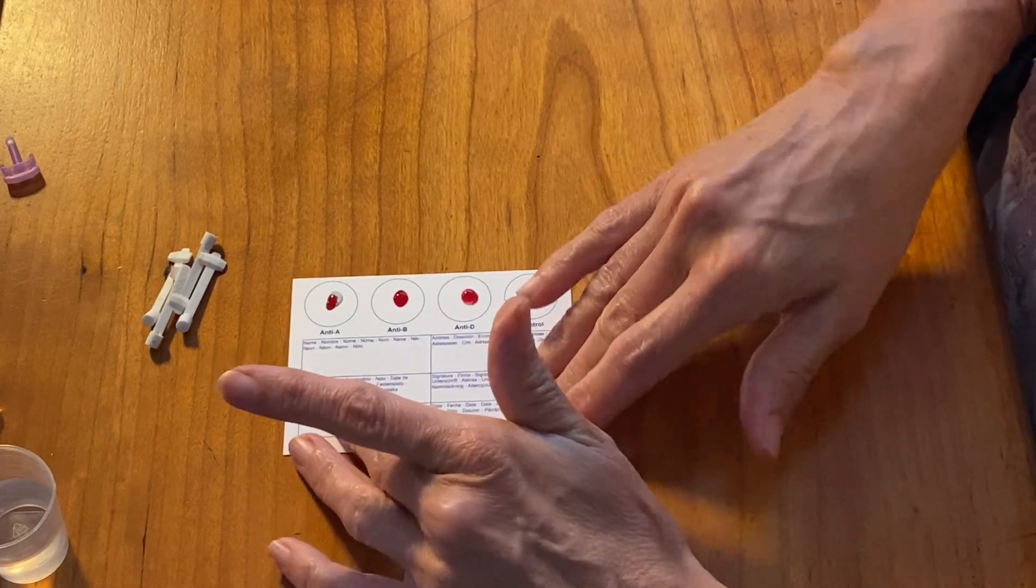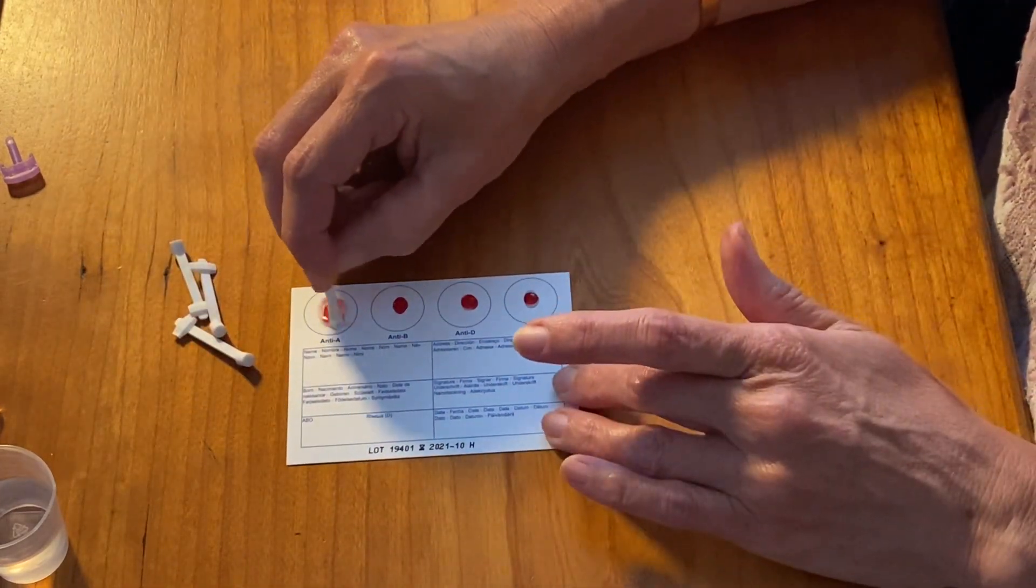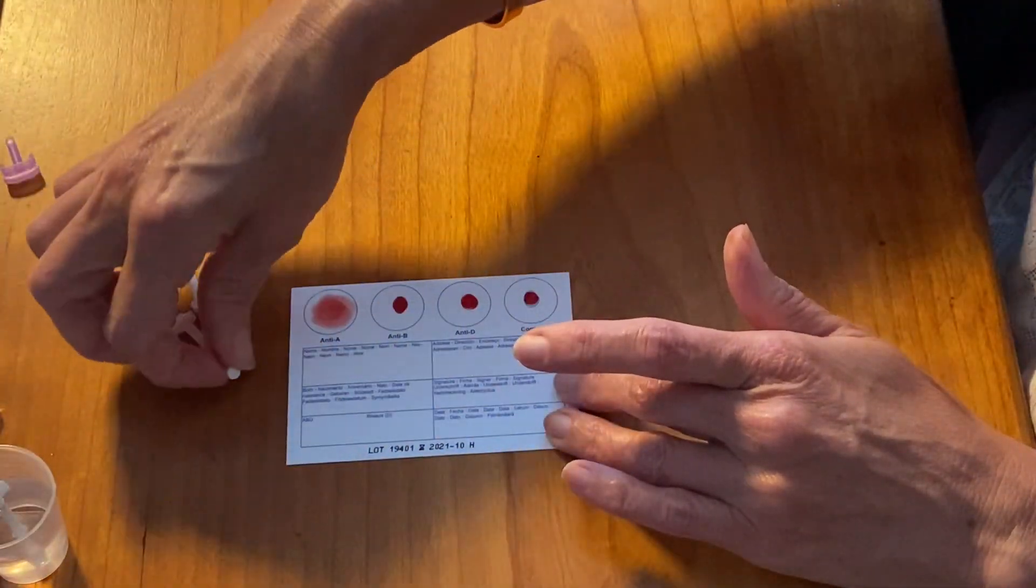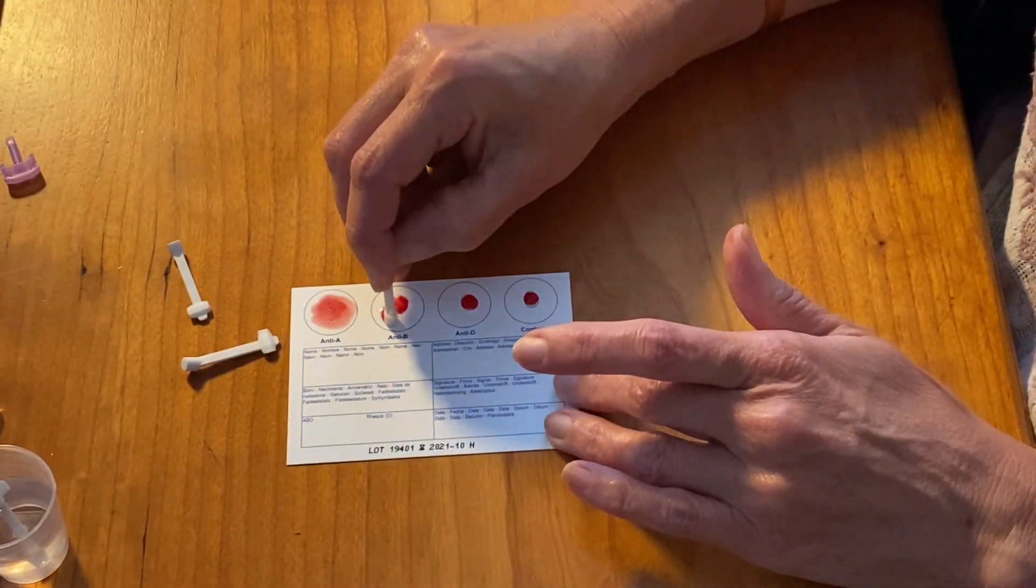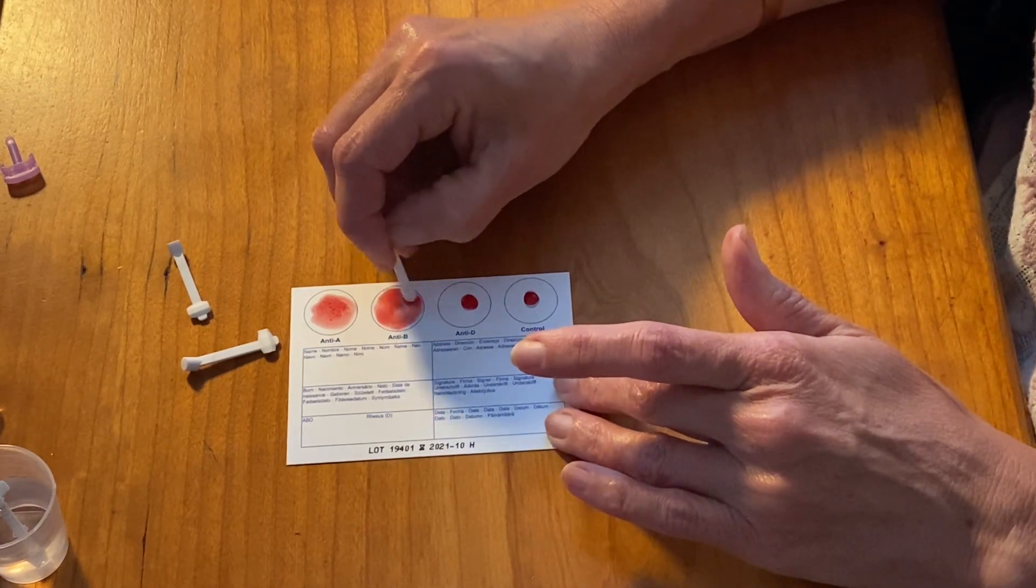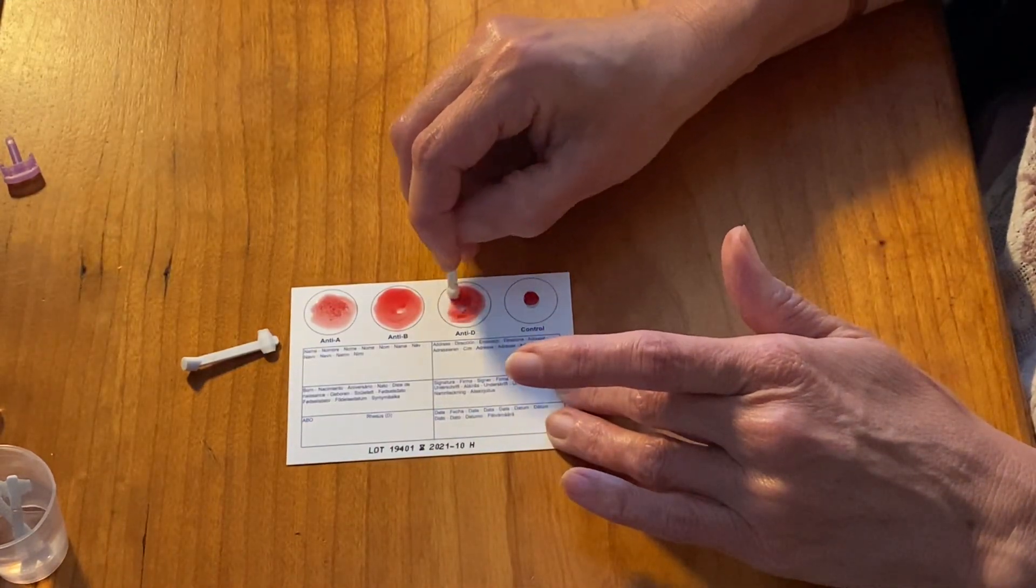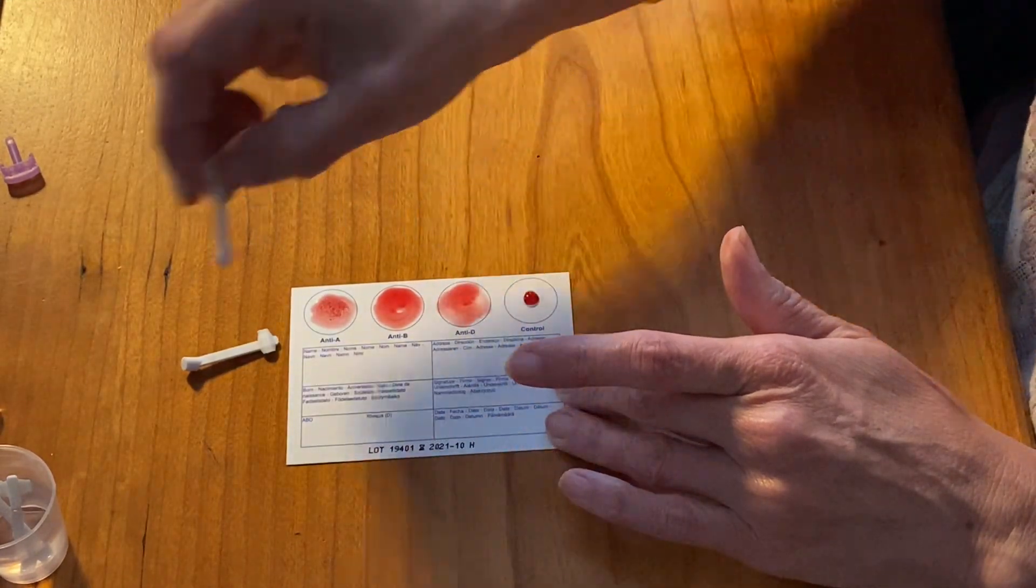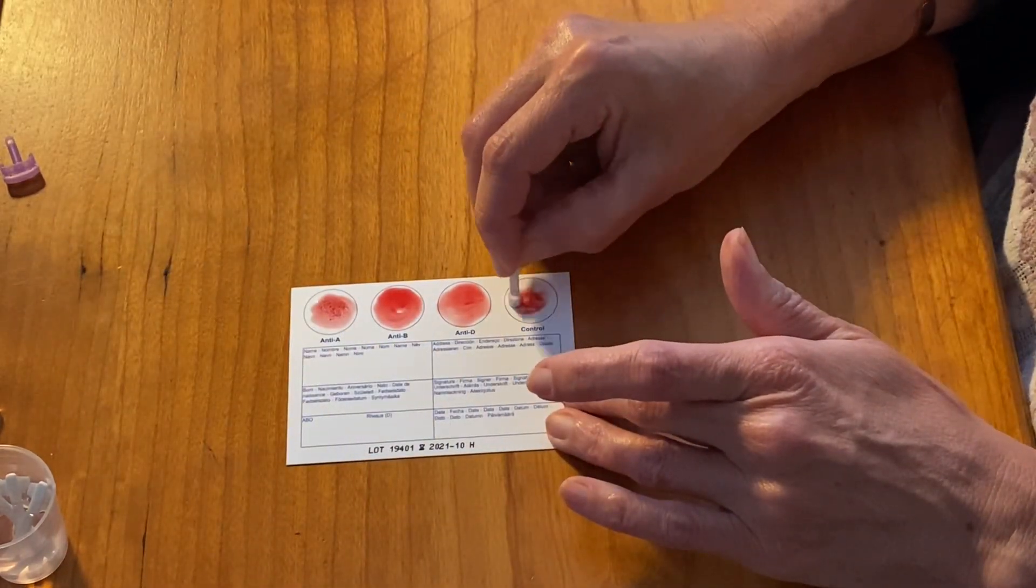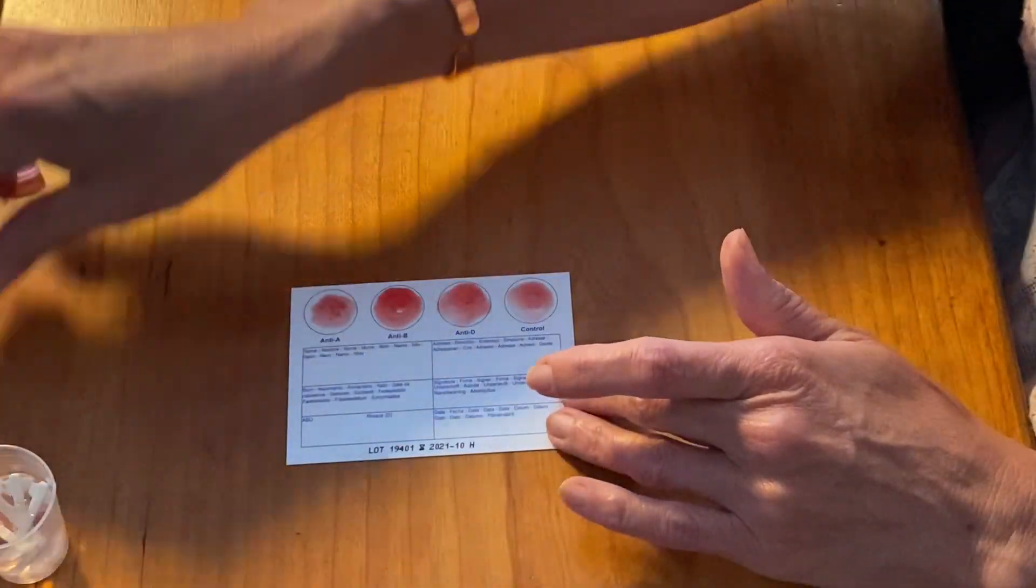Then you get the sticks. Use a different stick for each one. Don't use the same one. I'm going to pop it in there, all the way around. Different one again, all the way around. And then the final one is the control to make sure the card is good.